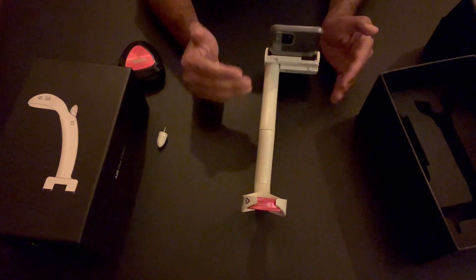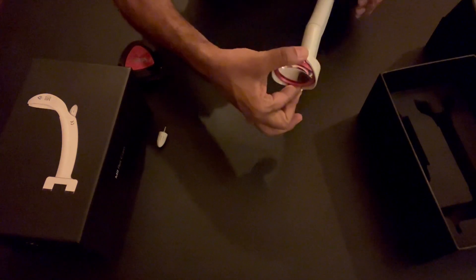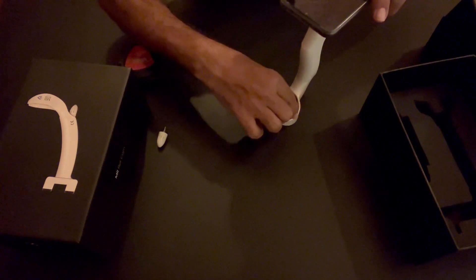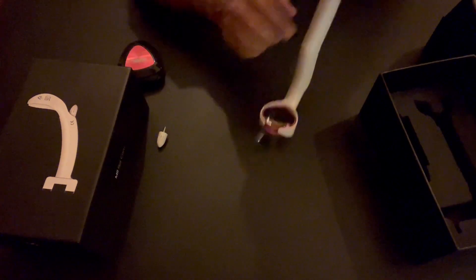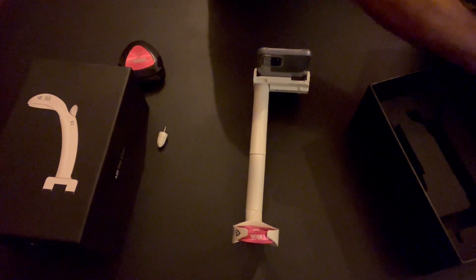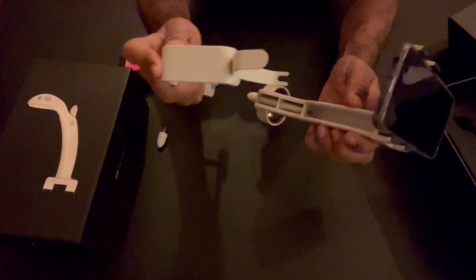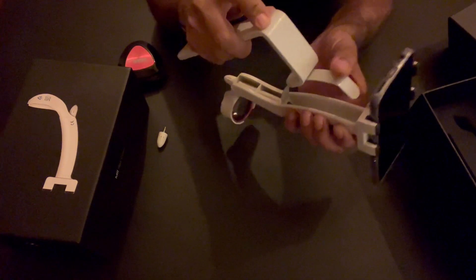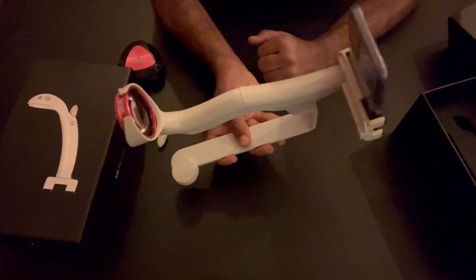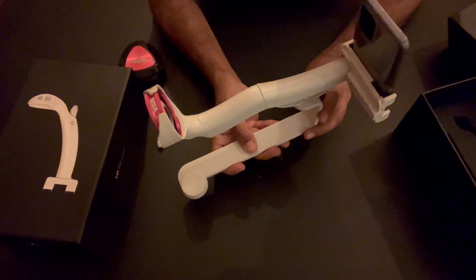In this particular video our purpose was to show how to assemble the handheld mi red cam. If you want to take the phone out, you can remove it with just a flick maneuver, and to put it back, keep it at the flat surface, press it and it snaps in. I can also briefly explain how the slit lamp mount works: there is a groove and a flat portion — apply a little pressure and the device goes inside, making it ready to go on the slit lamp. A future video will show how to mount it on the slit lamp.